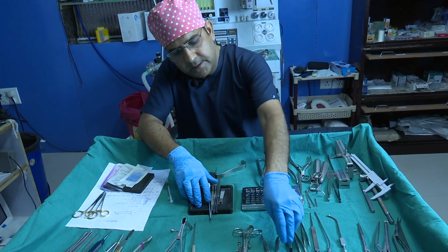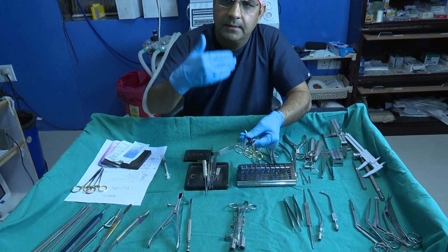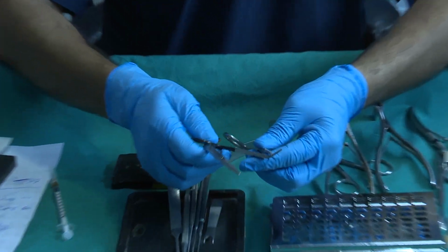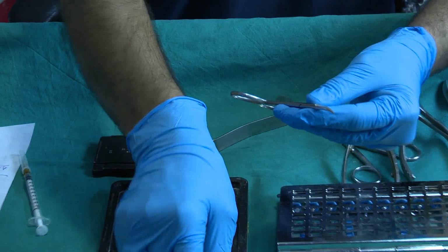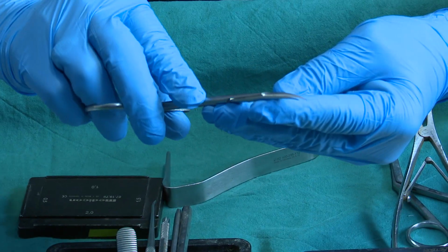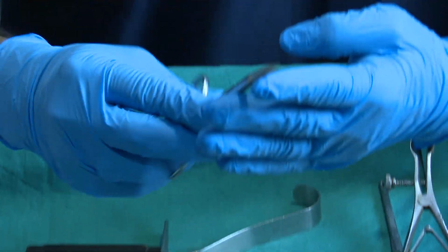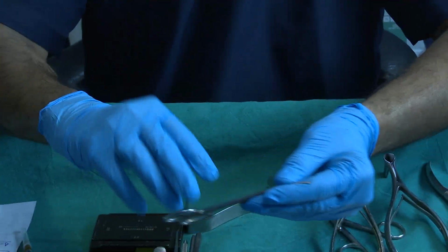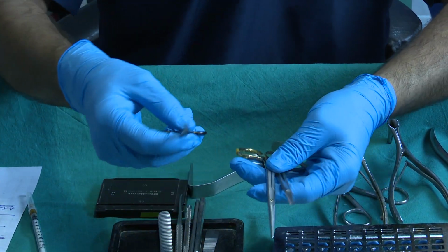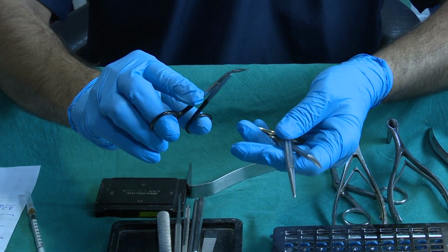Another important thing we need after the incision to lift up the flap: I love this scissor. This is a good scissor from Marina Medical. This scissor has a good angle, so we just spread it and cut, because it is an angled and sharp scissor. You usually need two or three good scissors. This is again an angled scissor from Marina Medicals.